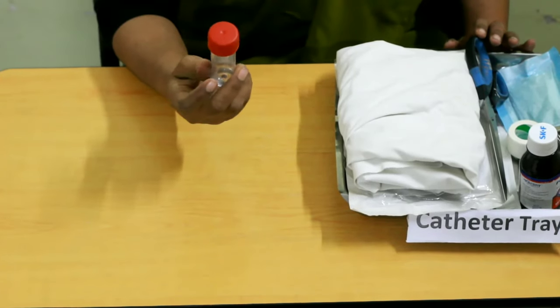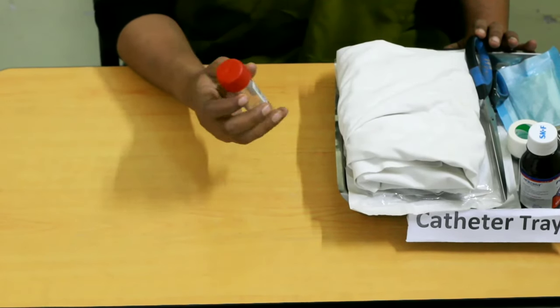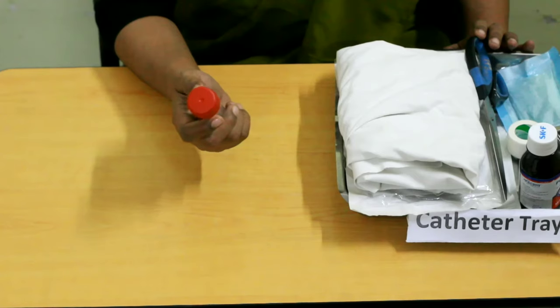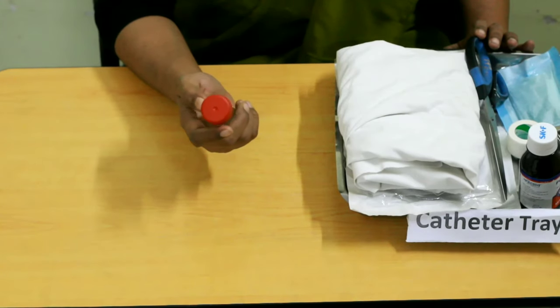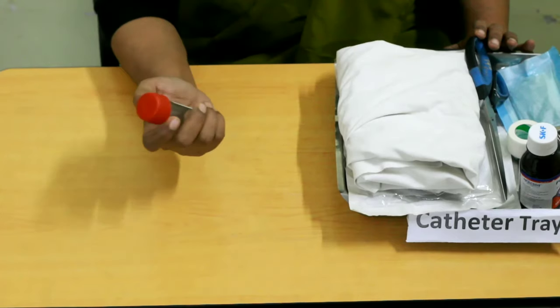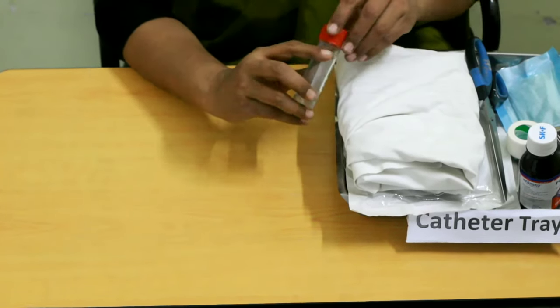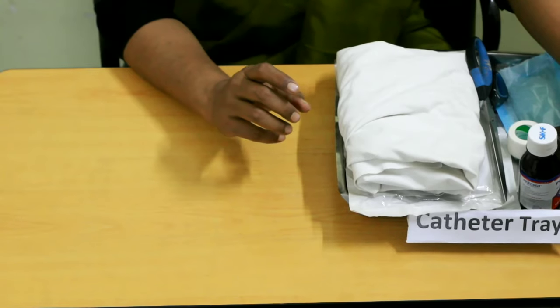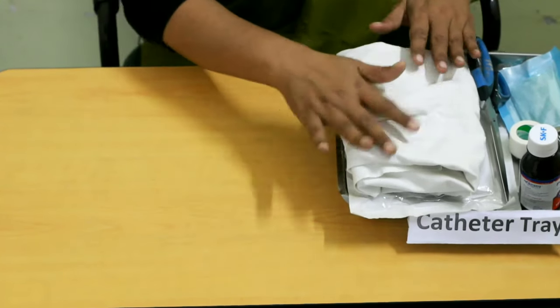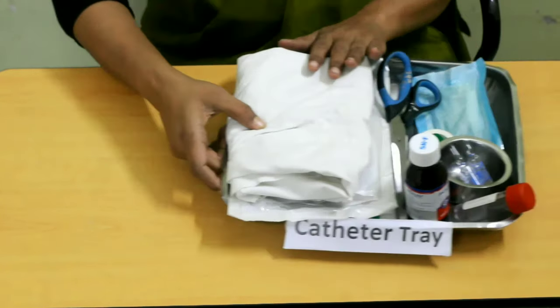We will talk about the urinary container for collecting the patient's urine. This is the most important thing for taking a urine sample. This is for routine urinary check. We have to use the container along with the catheters, equipment, and instruments.